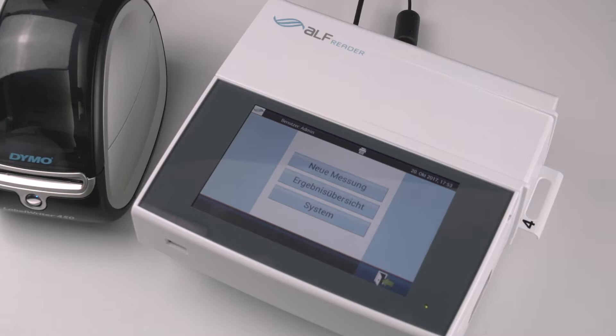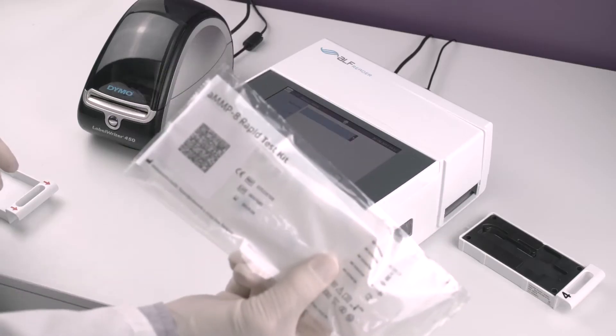After that, scan the QR code located on the test package by holding it at a distance of 5 to 15 cm from the device.